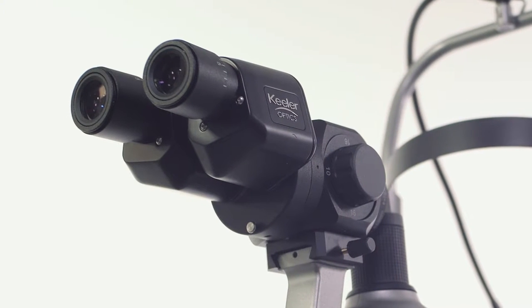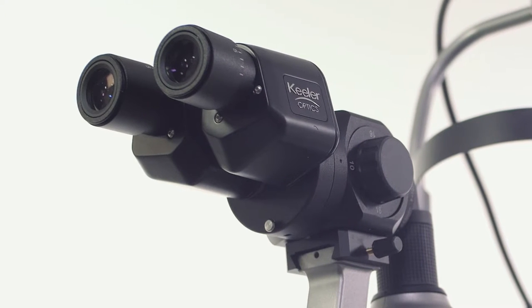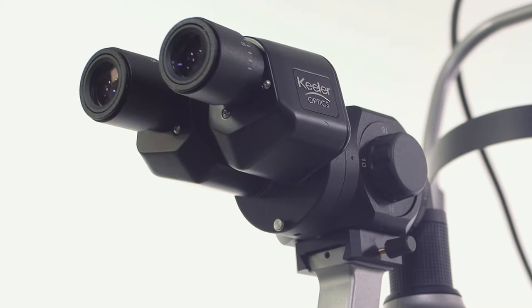Magnification ranges from 6 times to 40 times on the 5-step drum and 10 times to 25 times on the 3-step drum.